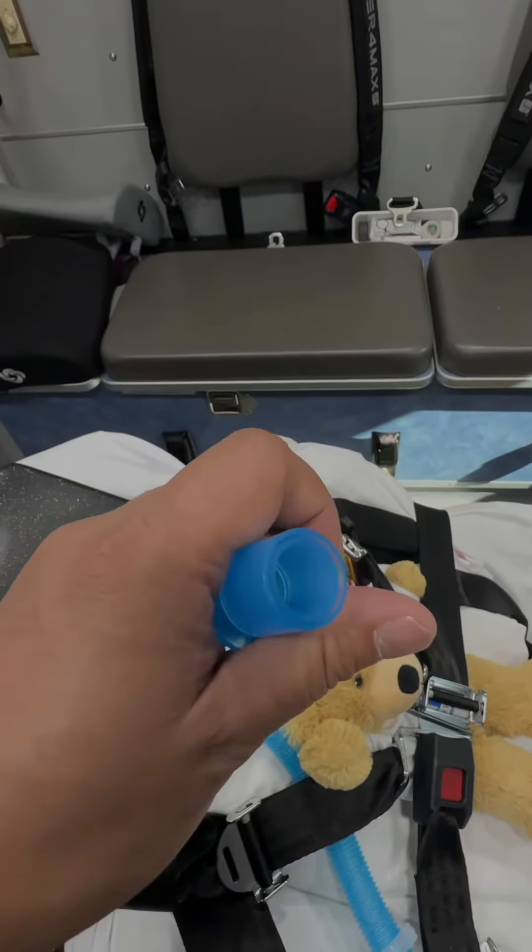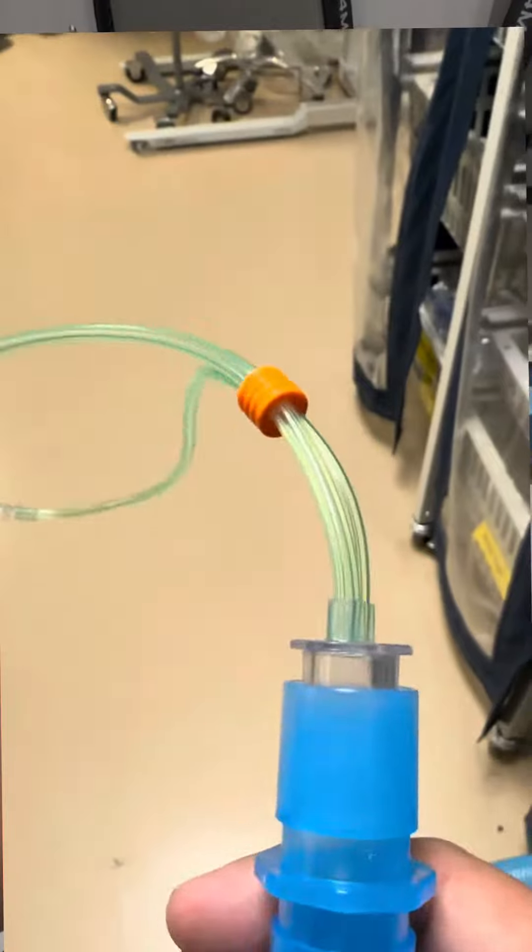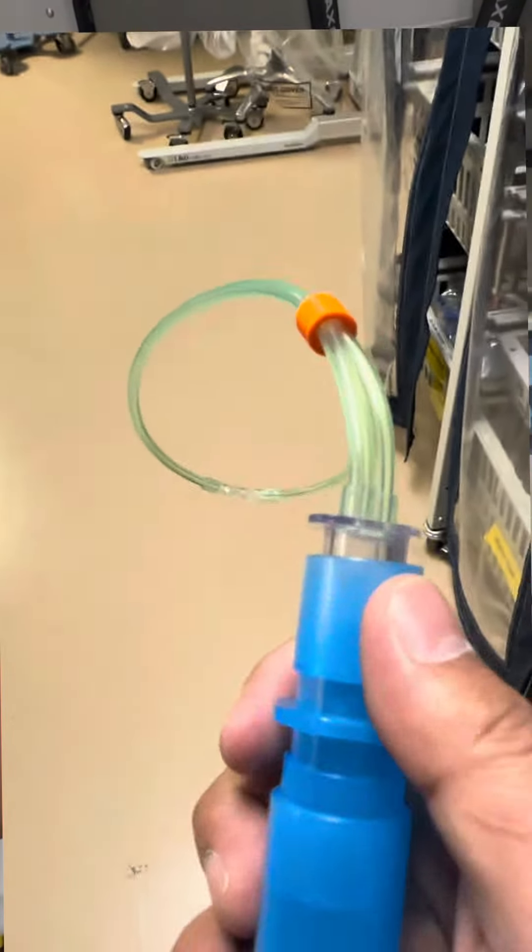Now this will fit a RAM cannula right here. This comes in the package, this 15 adapter.